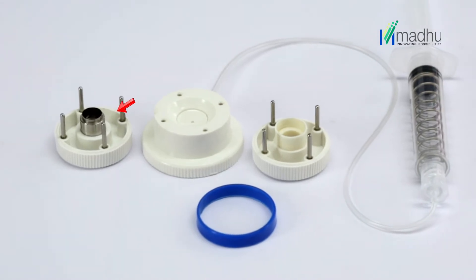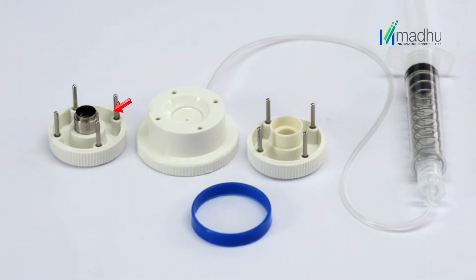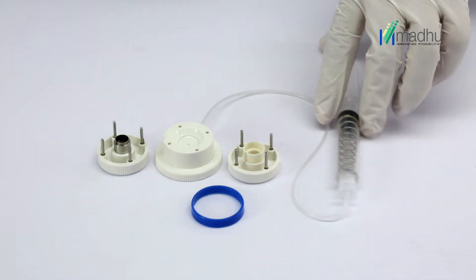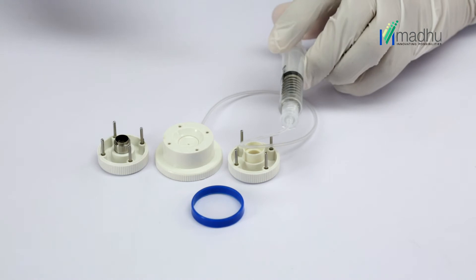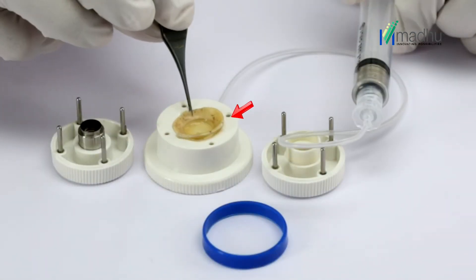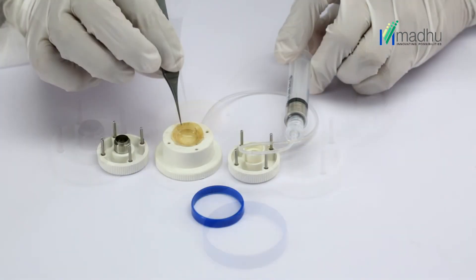Place the cutting block base on a solid flat surface. Push the plunger of the syringe all the way and hold. Now place the donor cornea in the well of the cutting block with endothelial surface up.